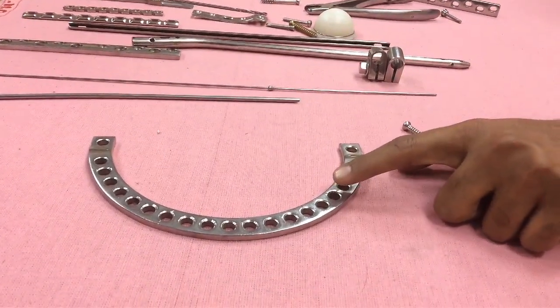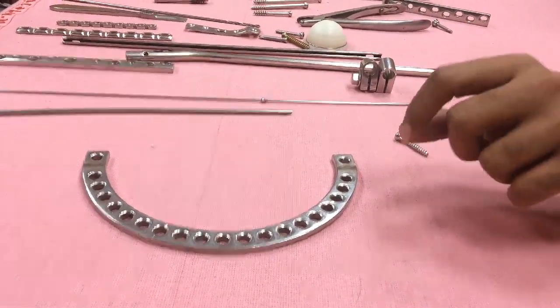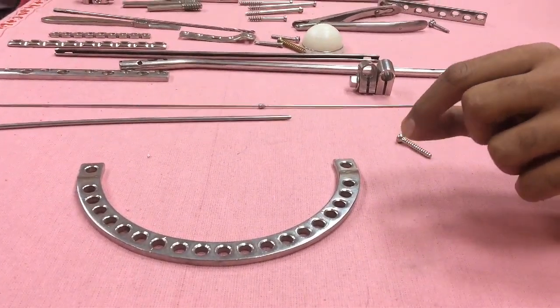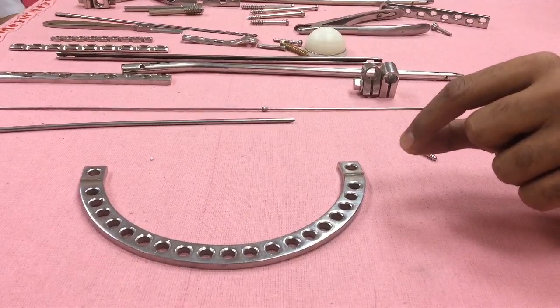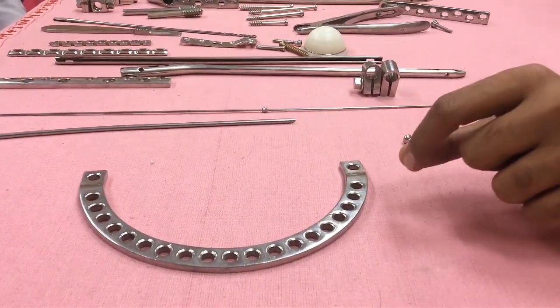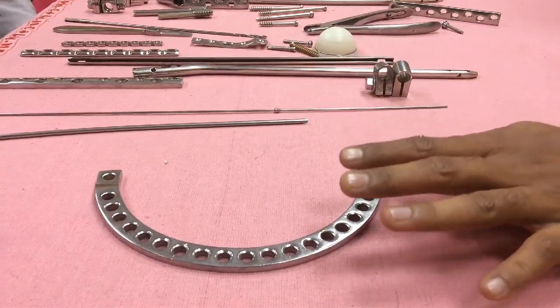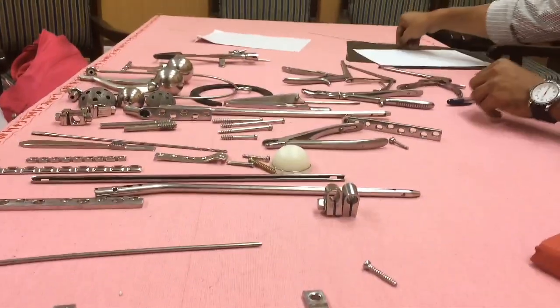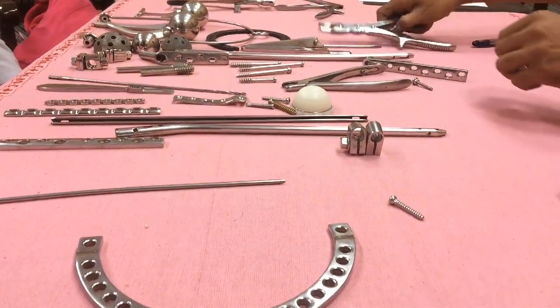This is an Ilizarov ring external fixator. It works on the principle of distraction histogenesis. There are two possible answers — distraction osteogenesis and distraction histogenesis — but the better answer is distraction histogenesis.